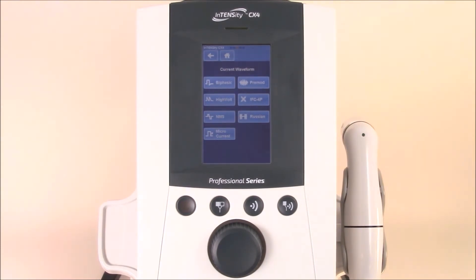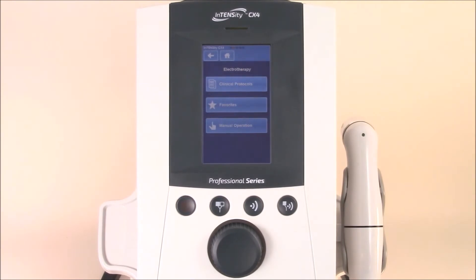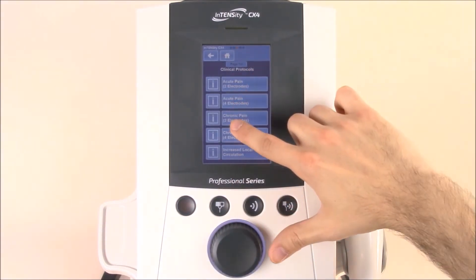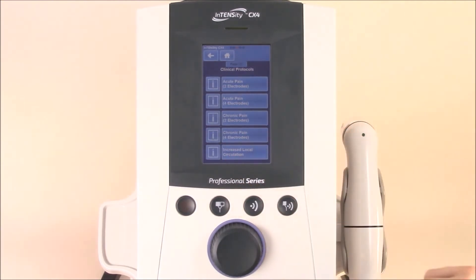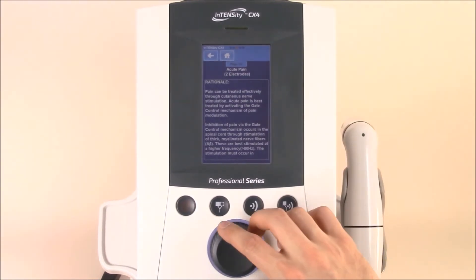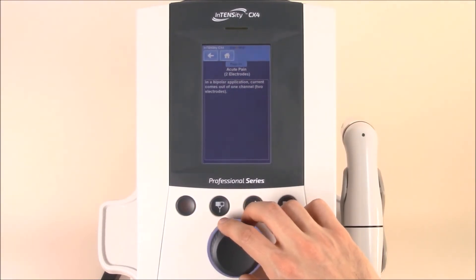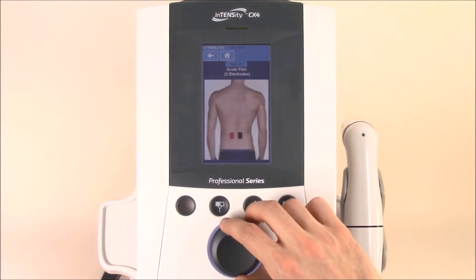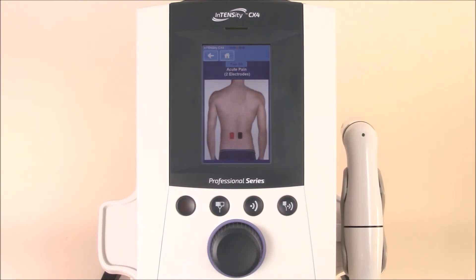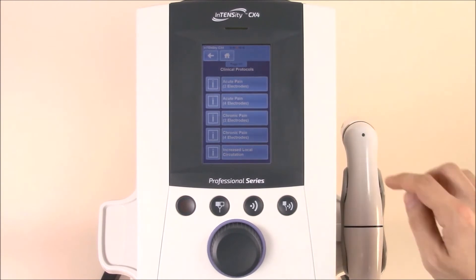You can simply select the back button to jump into the main electrotherapy screen. You'll also see the intelligent keys next to each one of the clinical protocols. When you hit this key, you'll find the waveform rationale. You can toggle forward to find a waveform description, and finally toggle forward again to find an anatomical guide for electrode placement. You can select back to exit the intelligent key and select a therapy to get started.